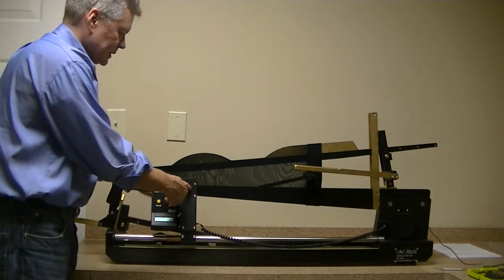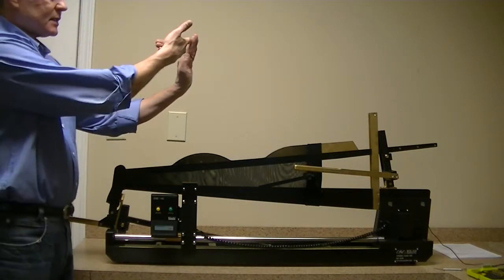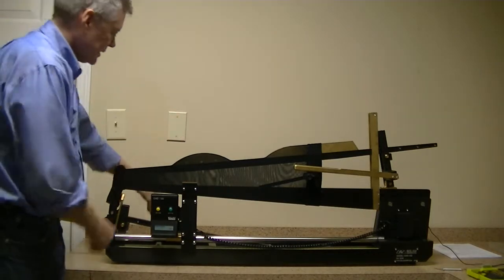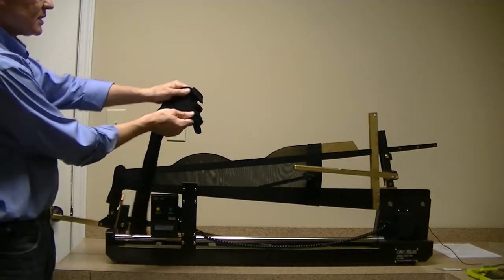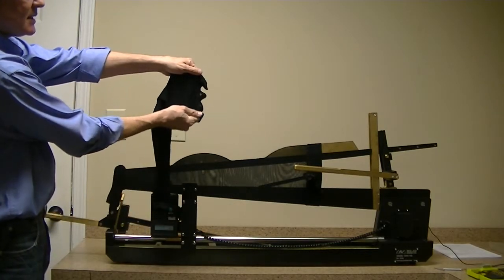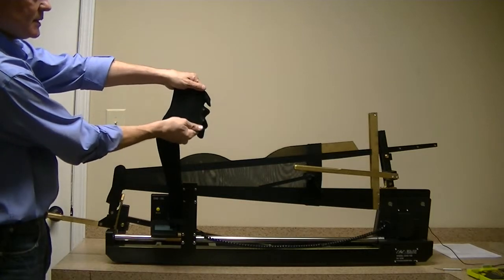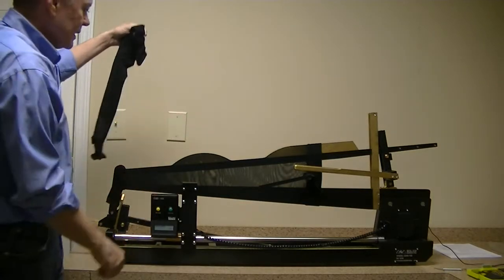It displaces the garment slightly and measures the tension in the sidewall of that garment when it's stretched to size. So it's measuring the tension by applying a load against here and measuring that.